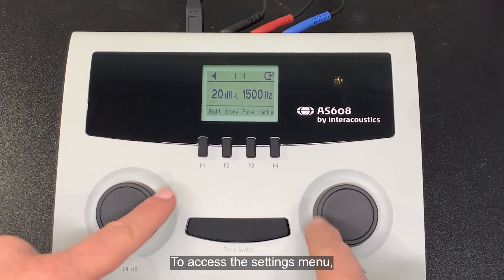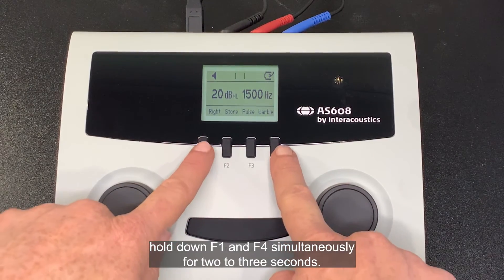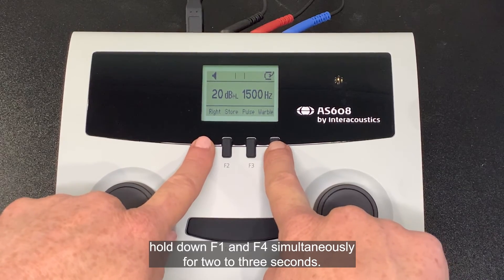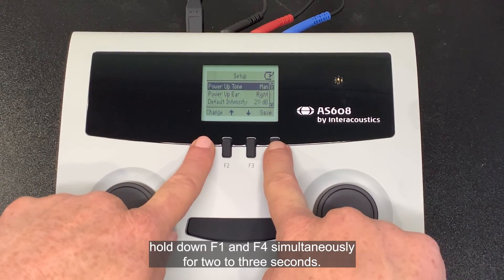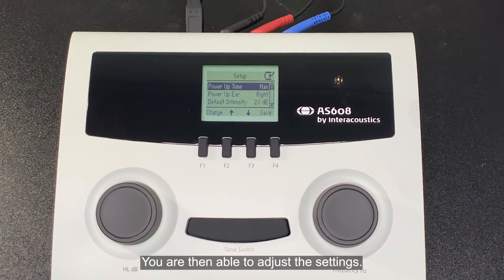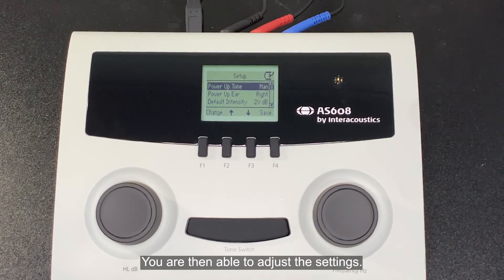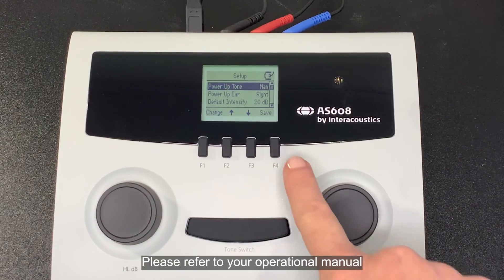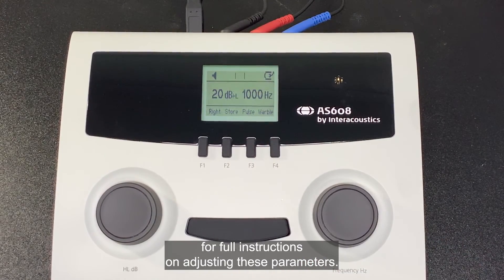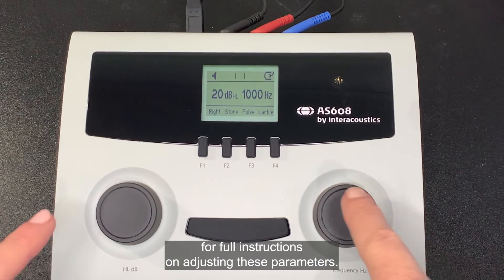To access the settings menu, hold down F1 and F4 simultaneously for 2 to 3 seconds. You are then able to adjust the settings. Please refer to your operational manual for full instructions on adjusting these parameters.